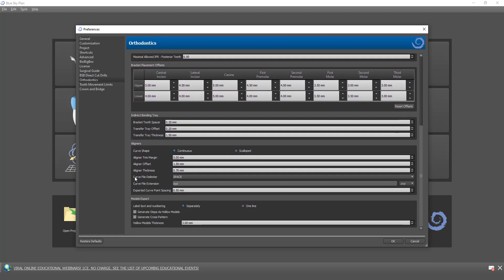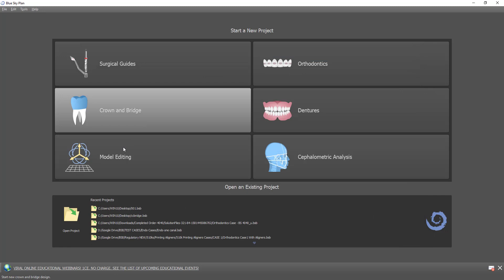Scrolling down, we have additional settings for generating the machine code. First, we have our curve file delimiter — that's what defines the spacing in the machine code. By default it's a space, but you can change it to a comma. We also have the curve file extension; by default it's a .xyz file, or you can choose custom and enter any other option. This is the file extension for the machine code file. The last relevant setting is the exported curve point spacing — this defines the spacing between the coordinates that the milling machine will receive. By default it's every half a millimeter, and you can leave that as default or change it with a custom setting. Now that we've confirmed these settings, we can start the process.